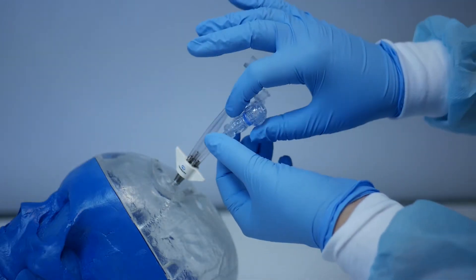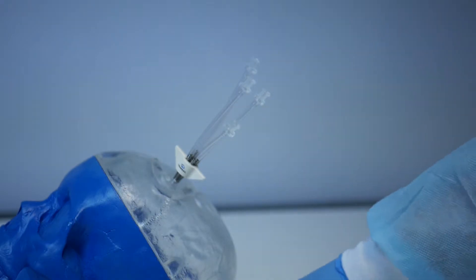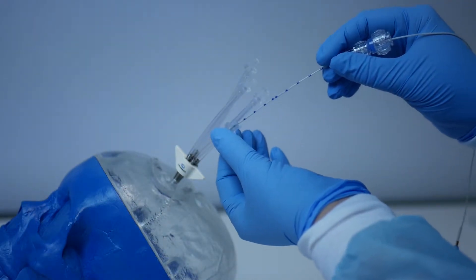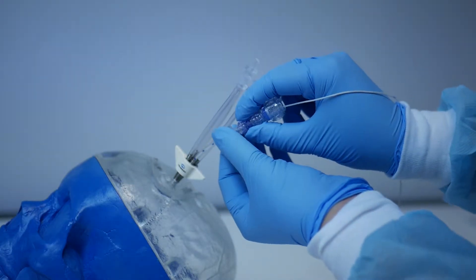Remove the compression fitting on the short pigtail. Take your preloaded perfusion probe and insert it through the short pigtail. Secure by turning clockwise.